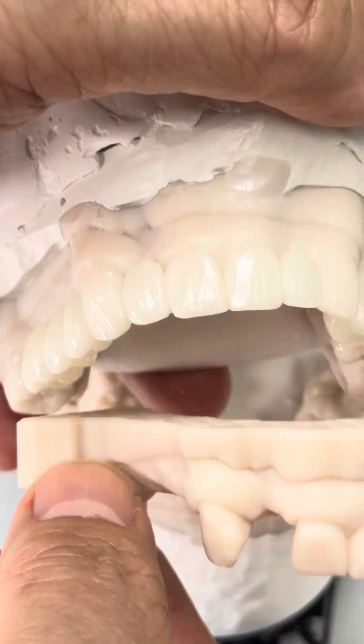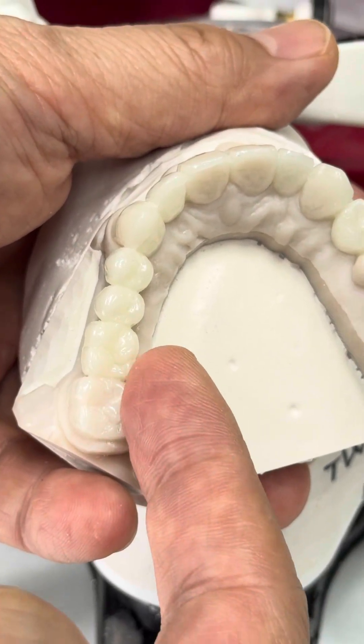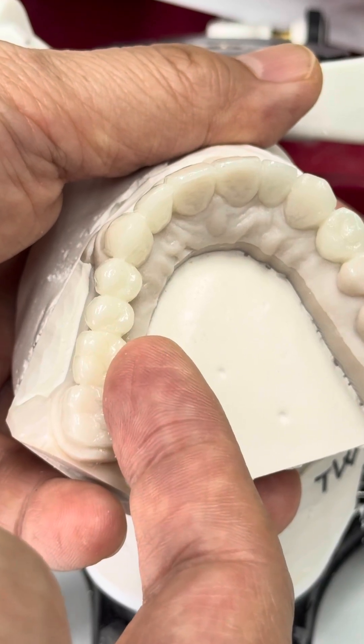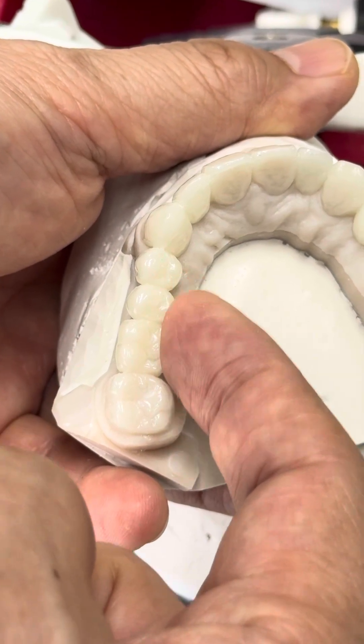We then choose this and here is the occlusion. Make smaller — I told them the implant will be getting smaller, smaller is better. So this is the diagnostic stage; when they place the implant we can position it with a healing cap here.